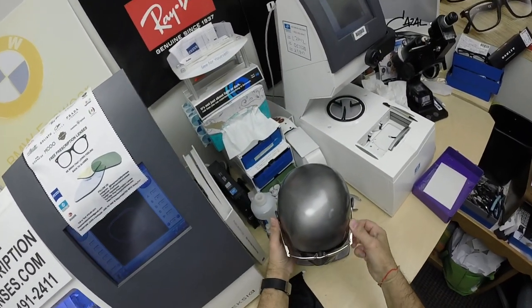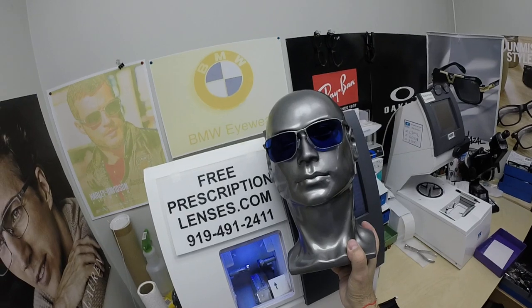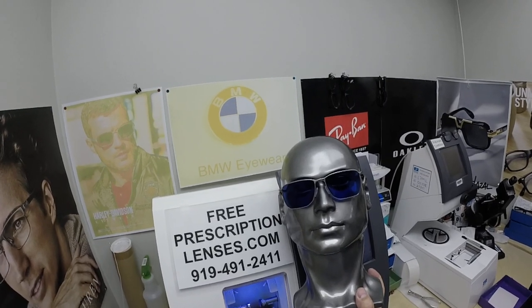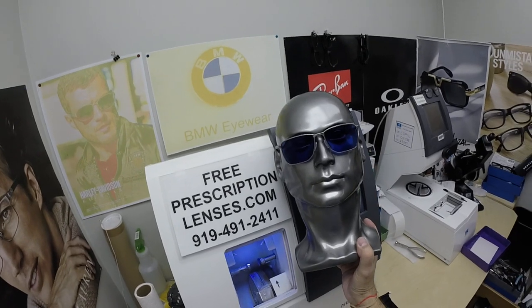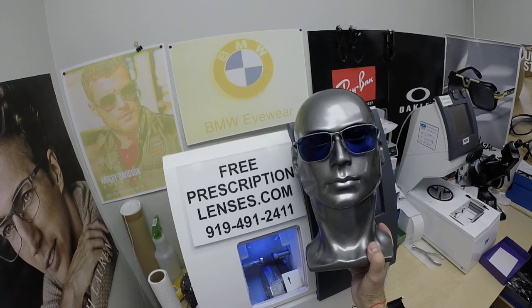The other thing is all photochromic lenses are temperature sensitive, meaning they will get darker when it's 85°F and below than when it's 95°F and above. When it's a hundred degrees outside, they're miserable — nobody or nothing works 100% in that heat; we all work much better when it cools off. There is also the Zeiss Photofusion Extra Gray, designed for extra active people who spend extra amounts of time outside.